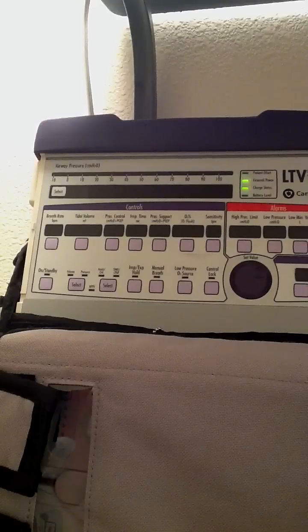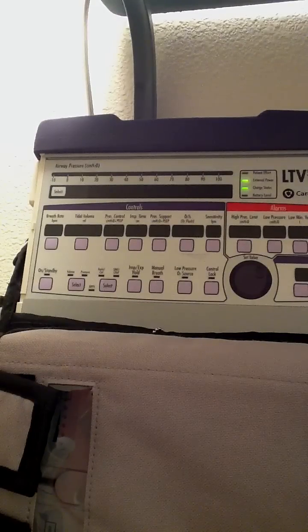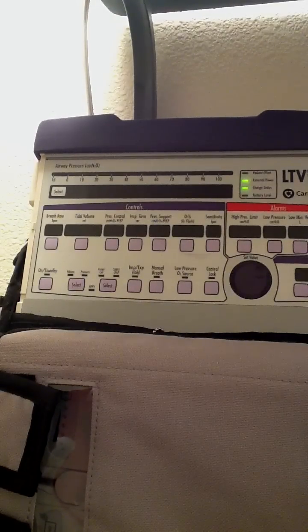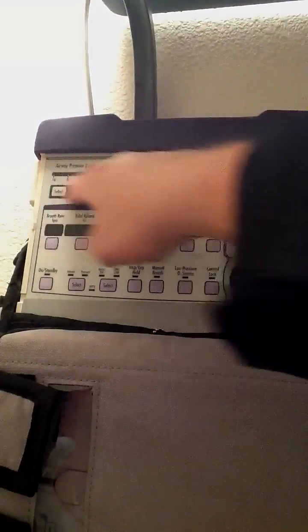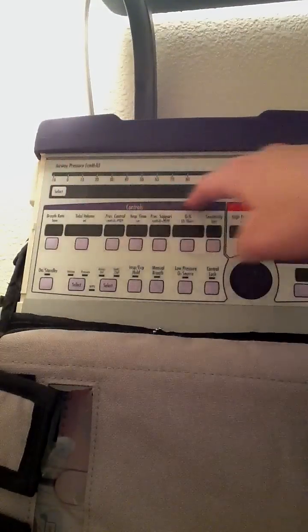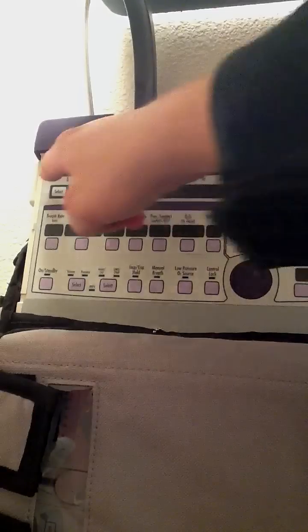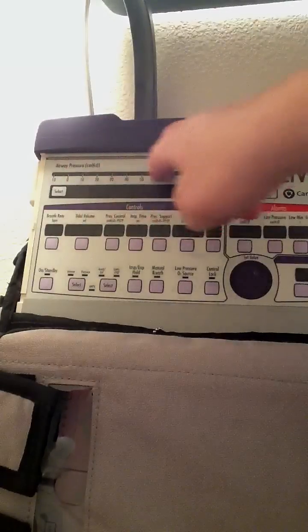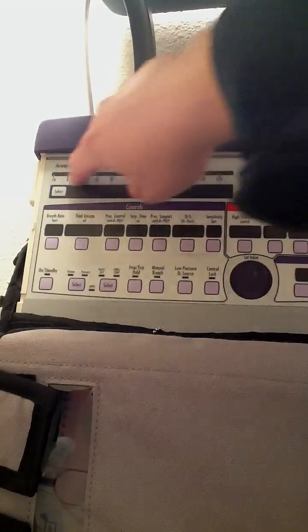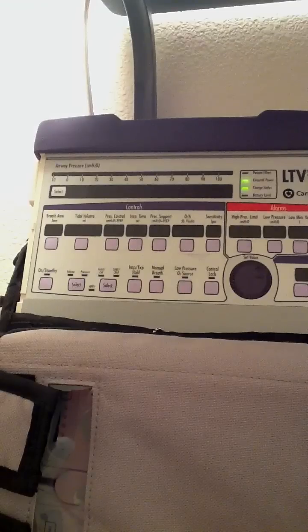Just to familiarize you with the setup of this ventilator — the interface — on the top here, this is going to be information about the patient. I have a little bar here, and with every breath, a little bar will move up and down, and that'll give me my PIP, or my peak inspiratory pressure.